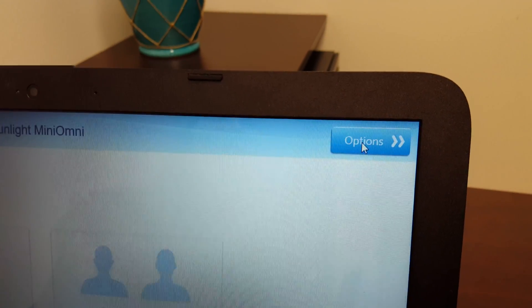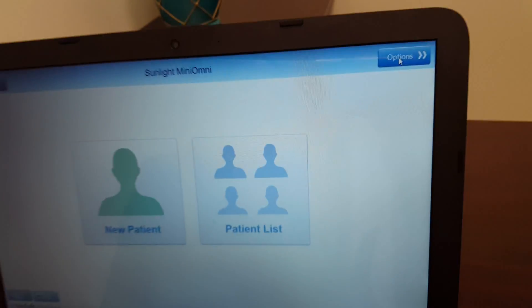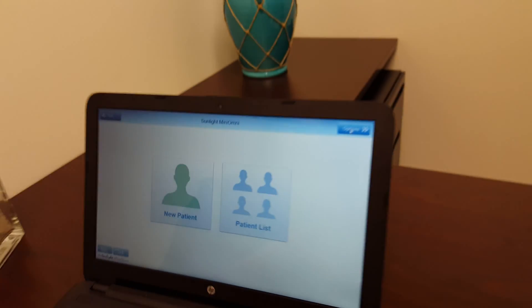Click finish, and that's it for the probe quality check before you scan patients. This was Tamara for Bmed, have a great day.